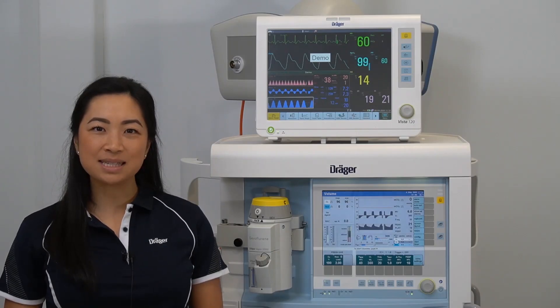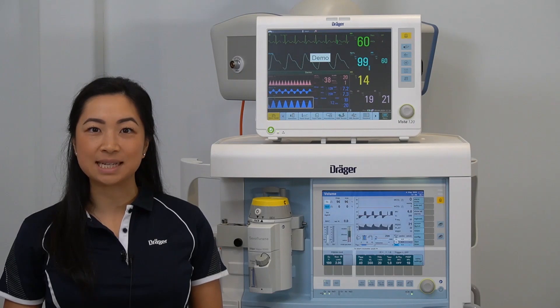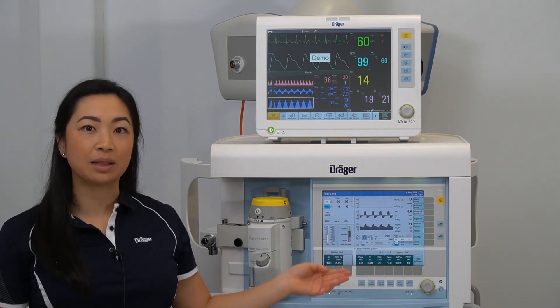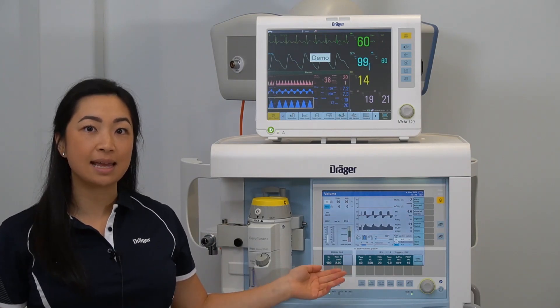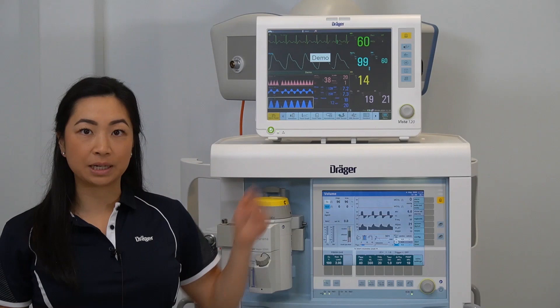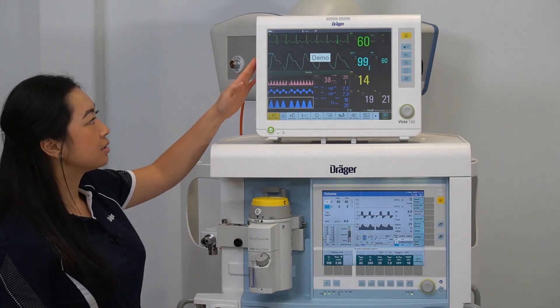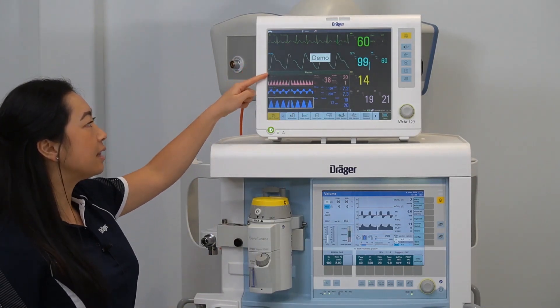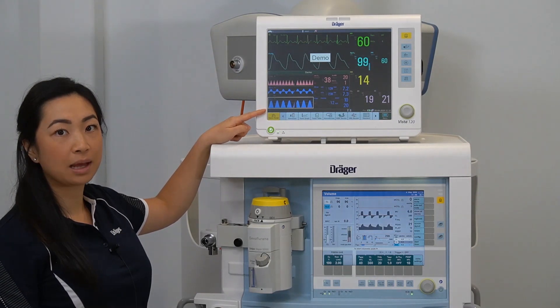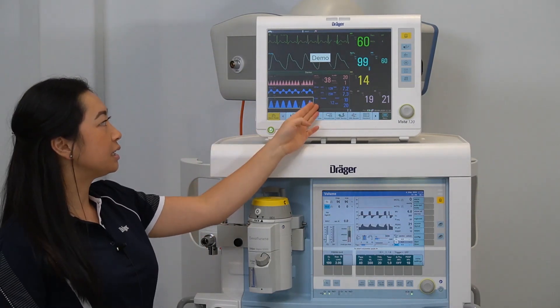Hello, my name is Samantha, and in this video I'll be demonstrating the communication between the Primus IE and the Vista 120 patient monitor. Here on this screen you can see the ventilation data being displayed. The information is being transferred across from the Primus IE.